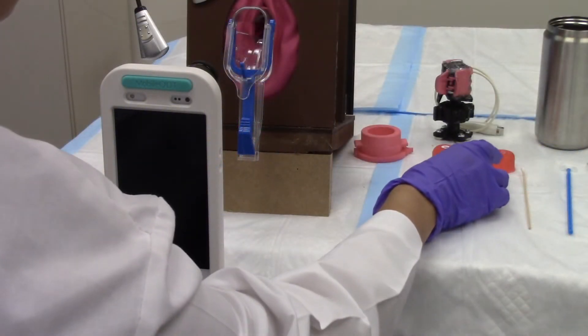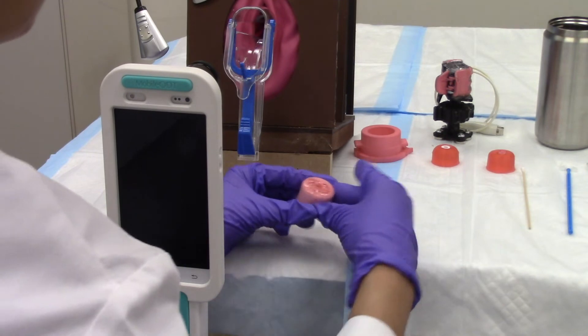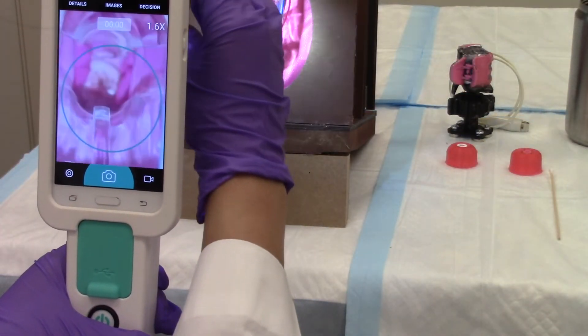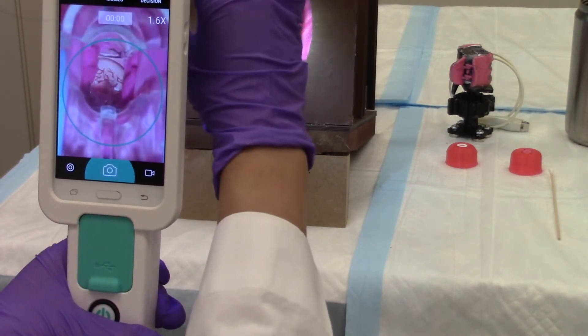The 3D printed cervical models are also good for colposcopy practice. Once inserted into the pelvic frame, a trainee can practice using and focusing a colposcope to visualize the cervical model.